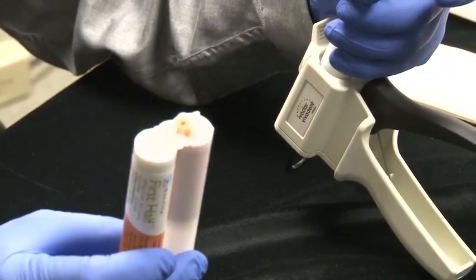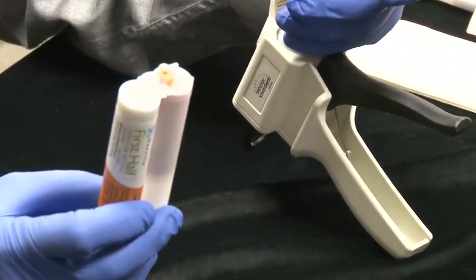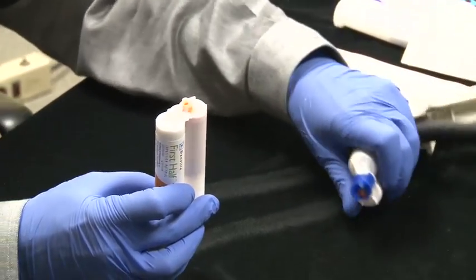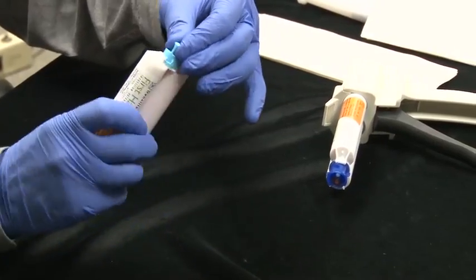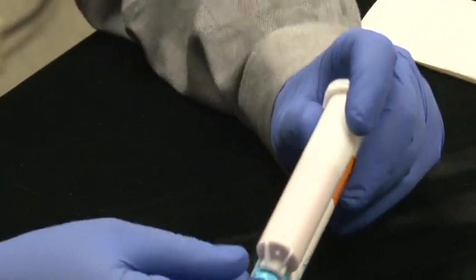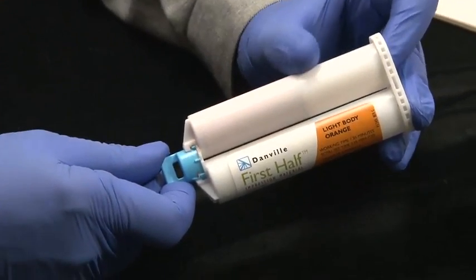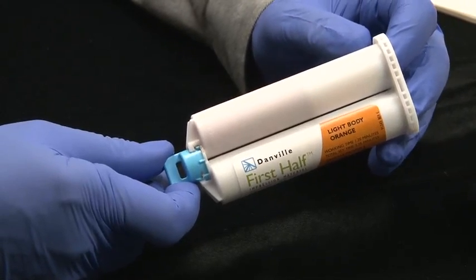Think about all the syringes you might have thrown out, the waste that occurs. So besides all the other advantages that we already talked about, we now have been able to provide ourselves with a really nice fresh syringe practically. We've now have our cartridge loaded up. If I had a third one, I might have filled this the rest of the way and we have a full cartridge.